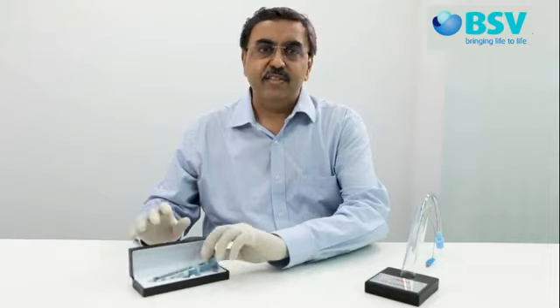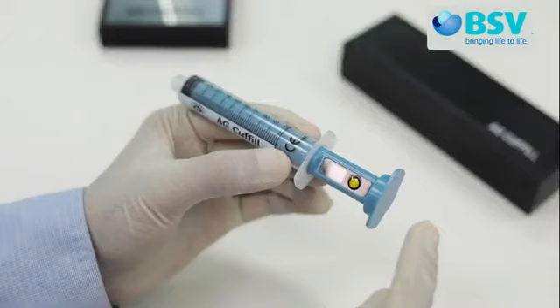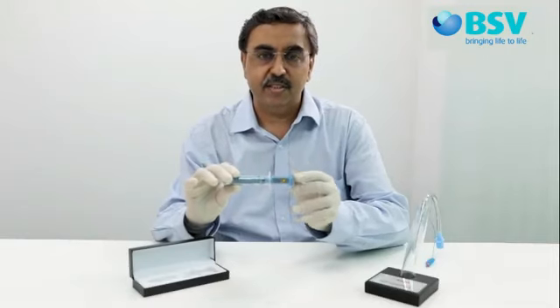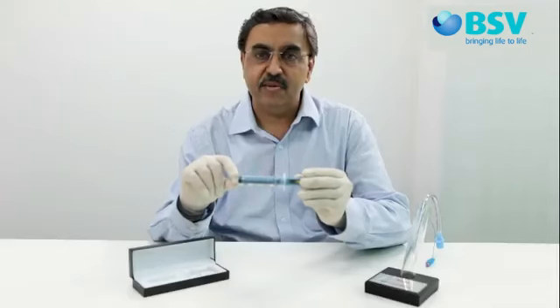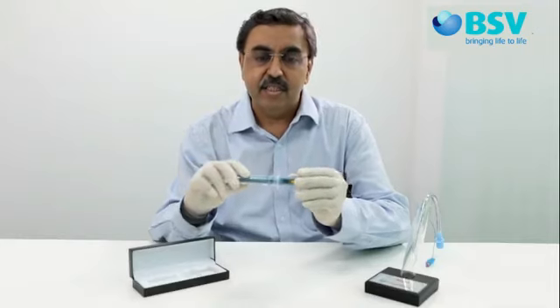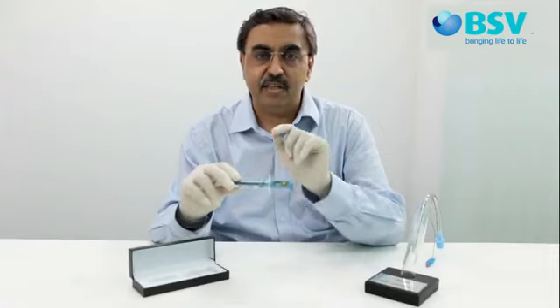AG Cuffil is designed as a 10cc syringe with an LCD display panel. The battery to operate AG Cuffil is housed in the head of the plunger. A sensitive sensor to record the cuff pressure is embedded inside the barrel at its tip. The LCD display at the end of the plunger displays the pressure in the cuff.